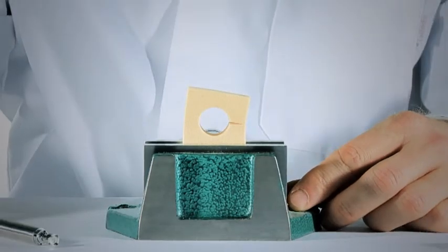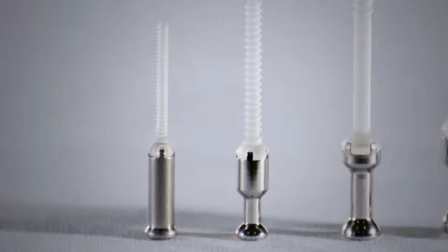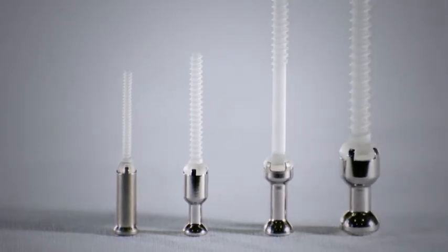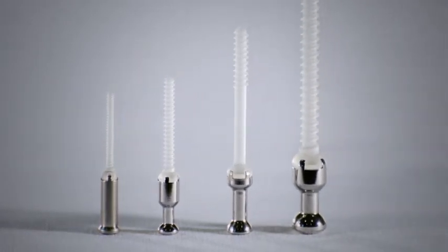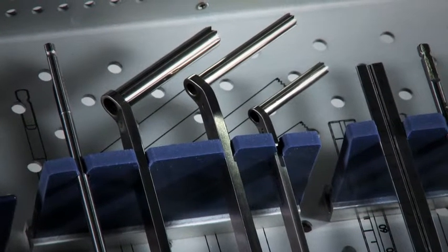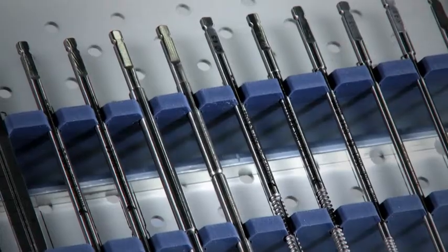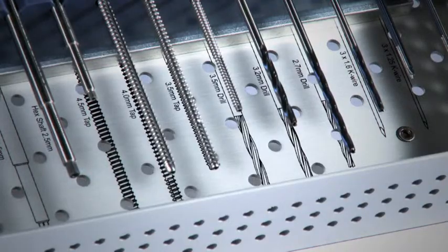The mechanical properties of the screw are fitted to those of the bone so that together they can create an optimal healing environment and a situation in which the strain is gradually taken over by the bone from the implant as the fracture heals and the strength of the implant decreases.